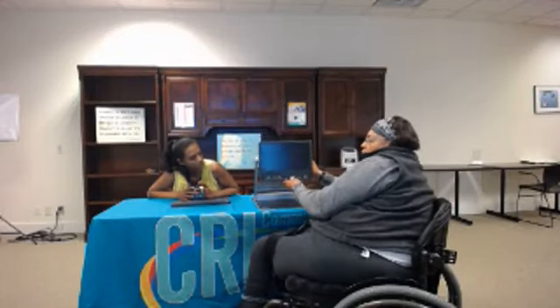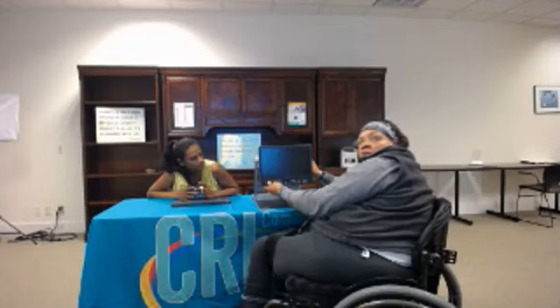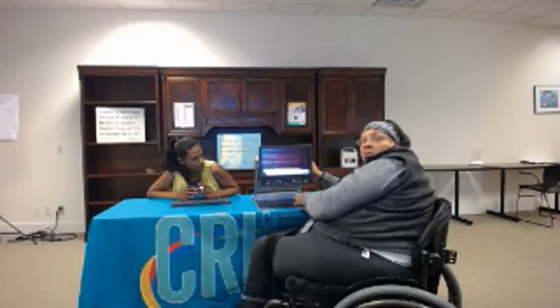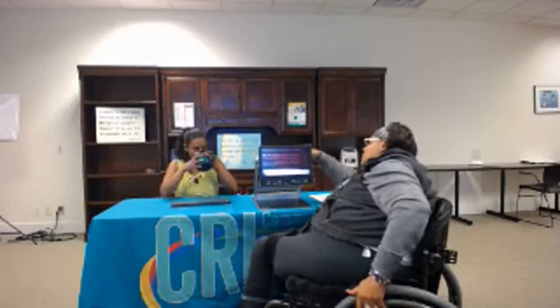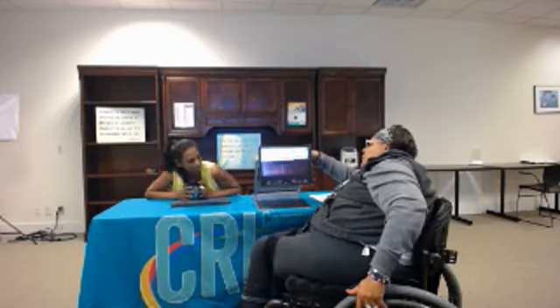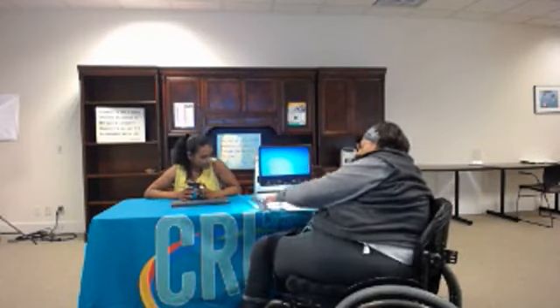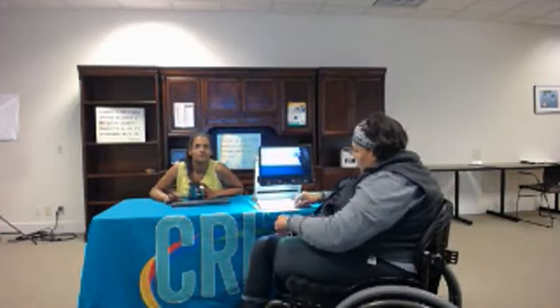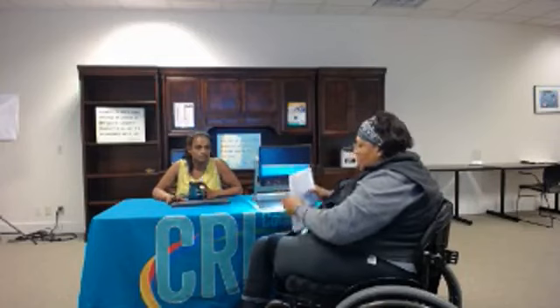I did bring some paper here. Can you see it on that screen up there? You can also see the screen too — like if you were in a conference and you're not able to see. You can also put the camera to where you're able to see. On here you do have the enhancer that will get bigger.